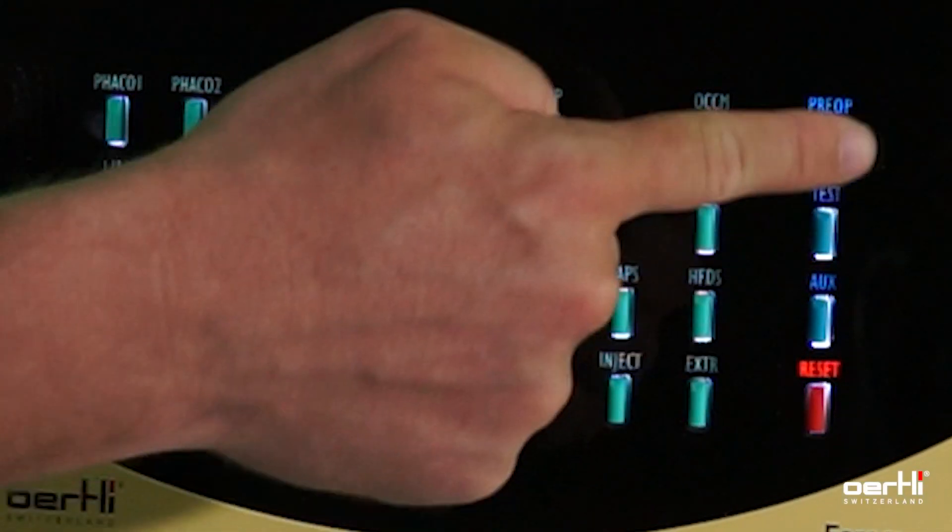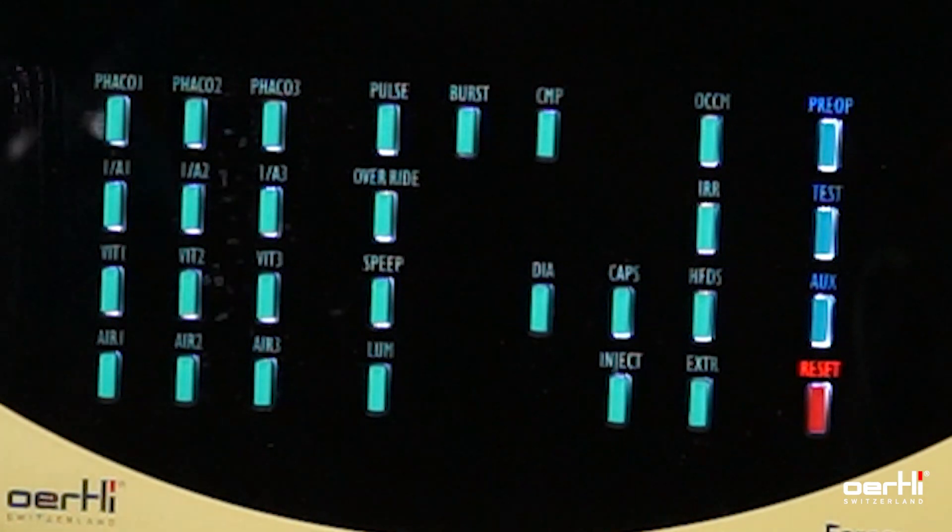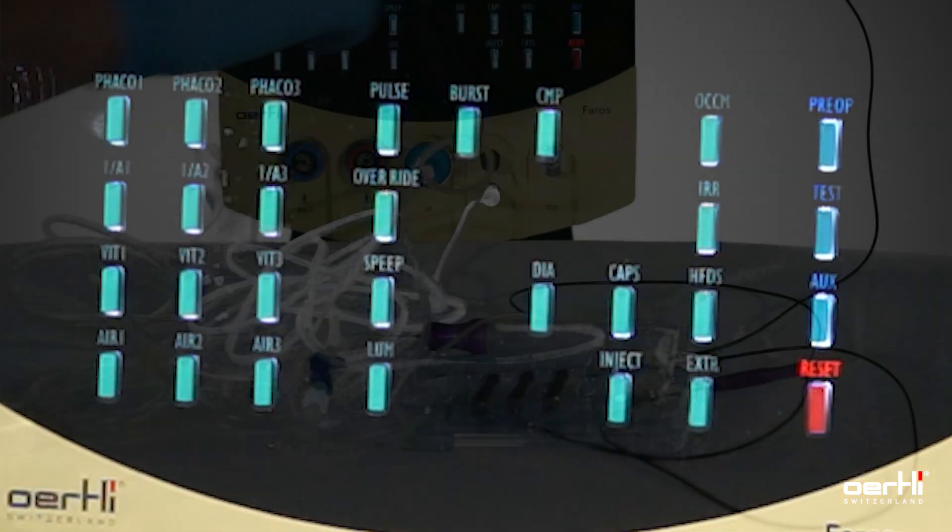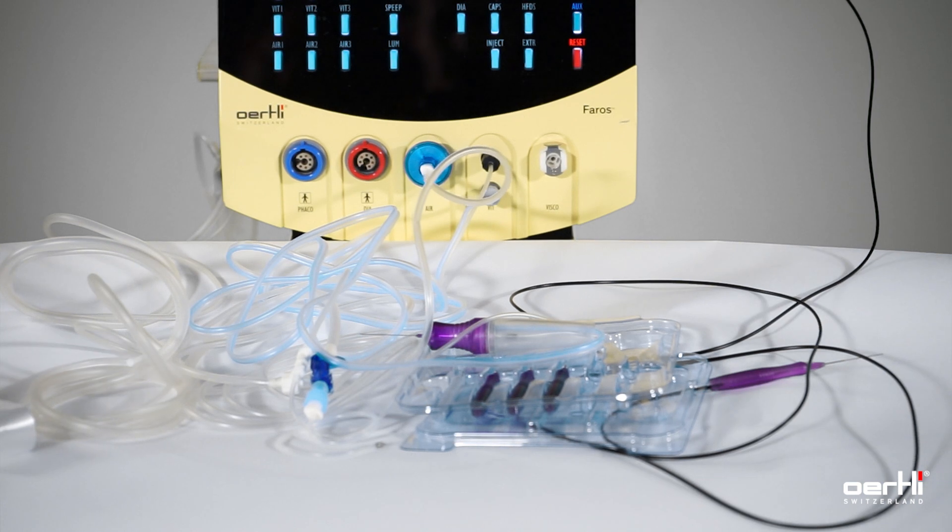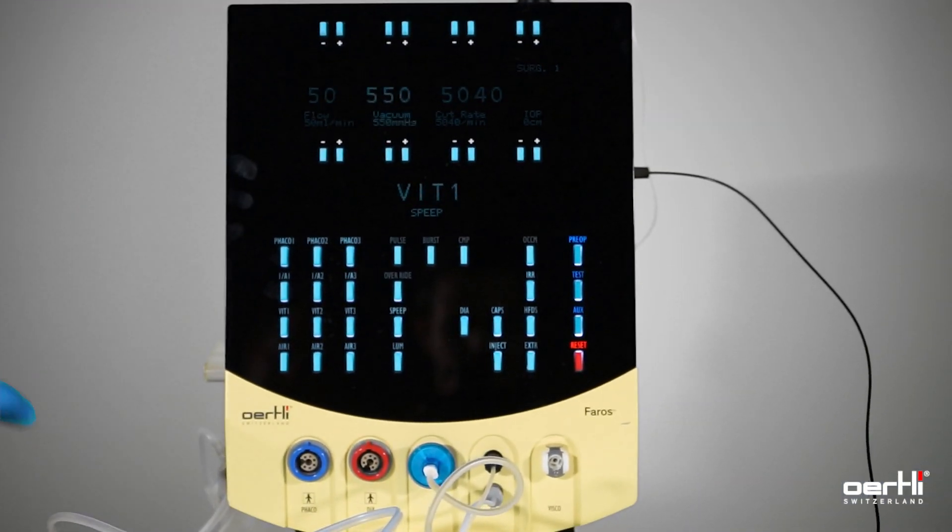And press pre-op. Double-check vitrectomy settings and you're ready to go.